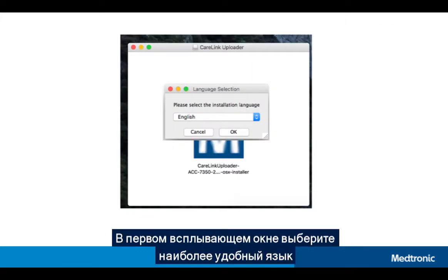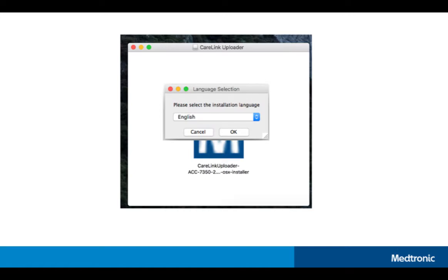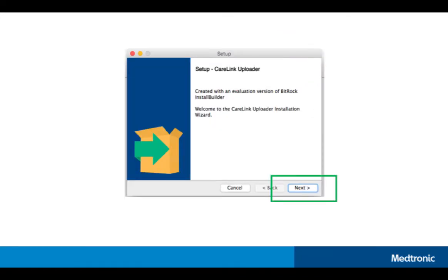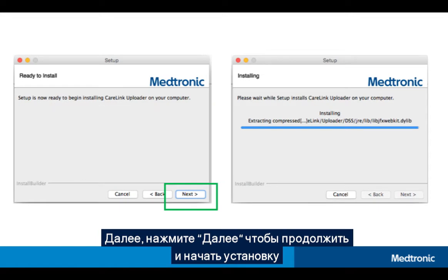On the first screen that pops up, select your preferred language. Click Next to begin installation, then click Next again to continue and begin the installation.